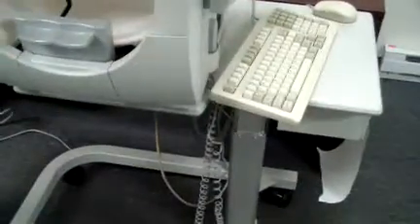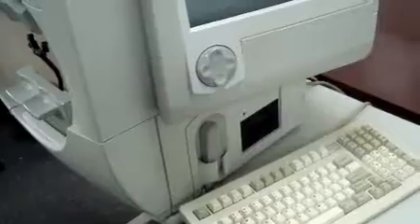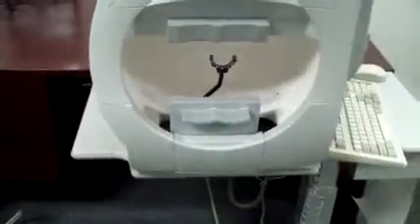The stand is obviously optional if that's something you want to have shipped. I may be able to get a newer stand for it, but it's going to be the same printer either way. The only difference here is this table isn't set up for the slide like the 740 is, but I do have a slide that I believe I could mount onto this tabletop that would work with the 750.